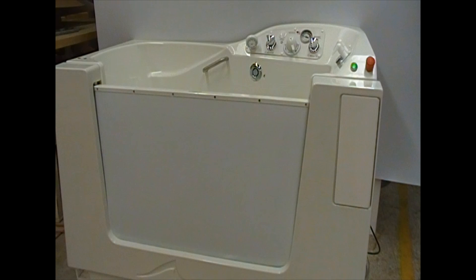Today we will review the basic functions of the Apollo Essence Spa. The Essence Spa has a power side entry door to allow easy access in and out of the tub. This door system has a built-in safety feature to prevent injury if an obstruction gets in the door's path. When you approach the tub, the door should be in the up position. Leaving the door up will keep the door sheets straight and in a like-new condition.